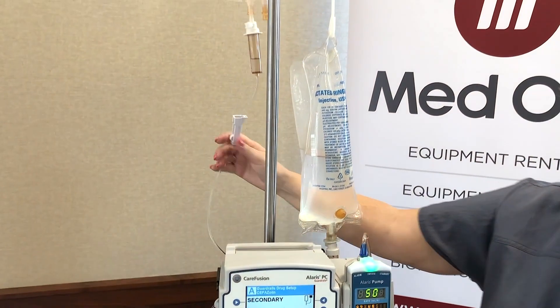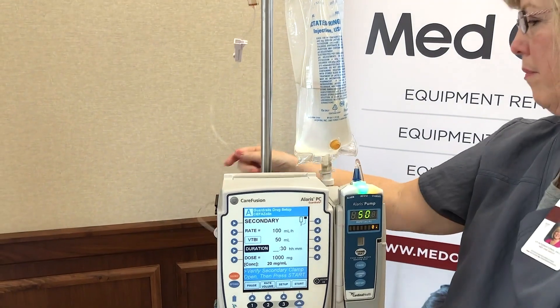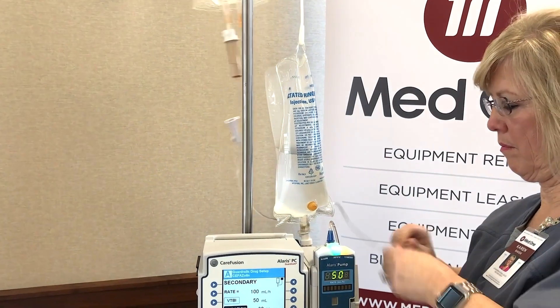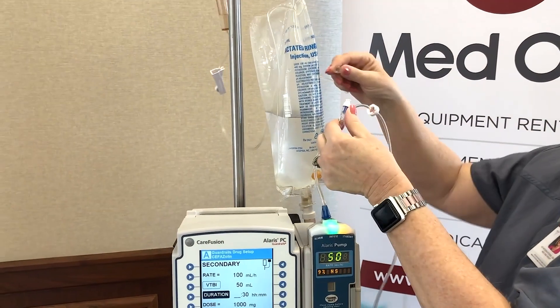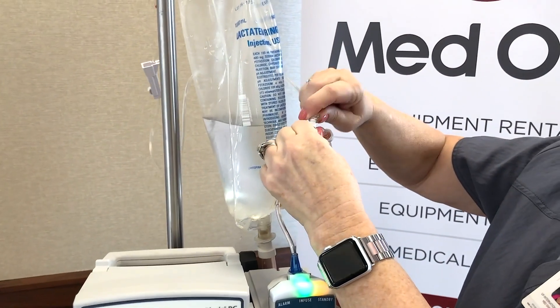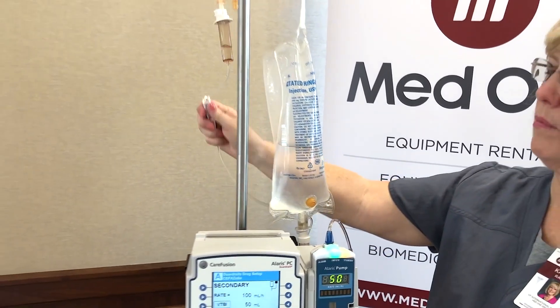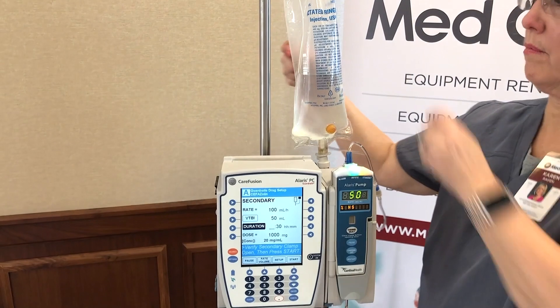But before we do that, we're going to make sure we connect our secondary tubing to our primary tubing at that port that we tipped and tapped — the first one we hit. So we're going to push and twist, open our roller clamp, and then press start.